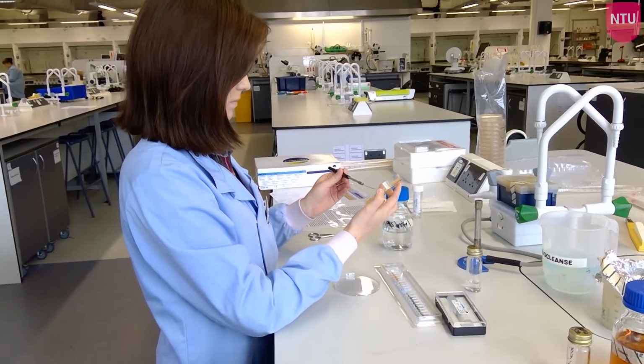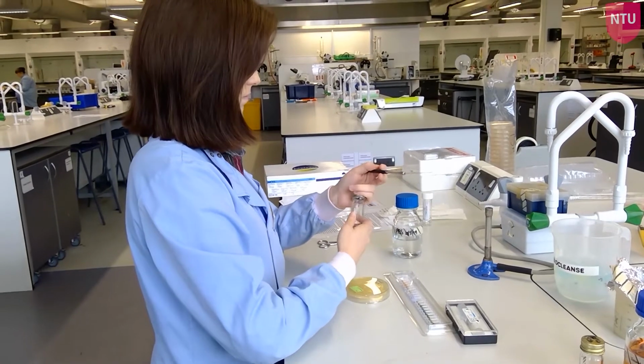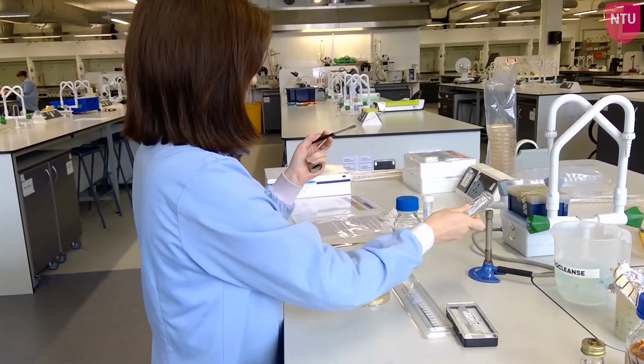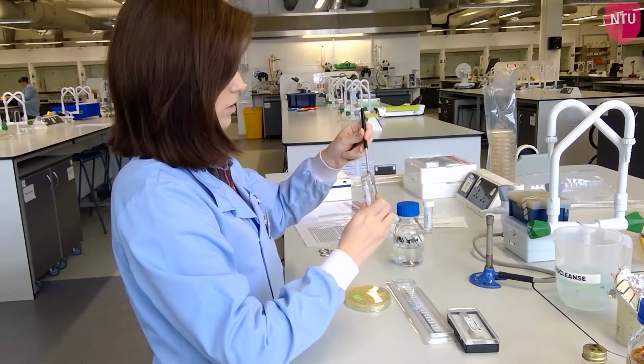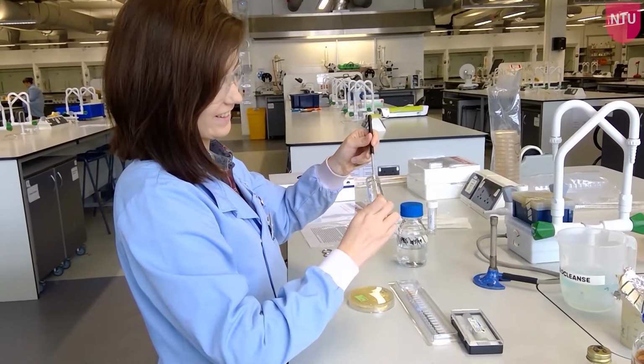First, ensure that you have all the necessary reagents, API strip, container and lid, and a fresh plate of your bacteria for testing. Add a few drops of water to the container holding the API test strip to ensure the atmosphere remains moist during overnight incubation.